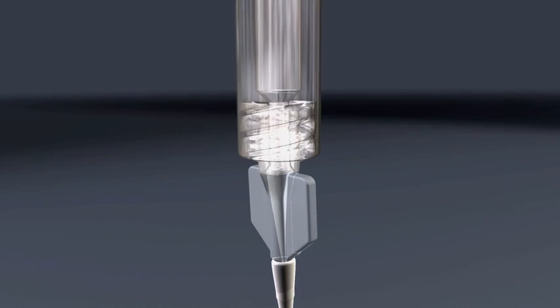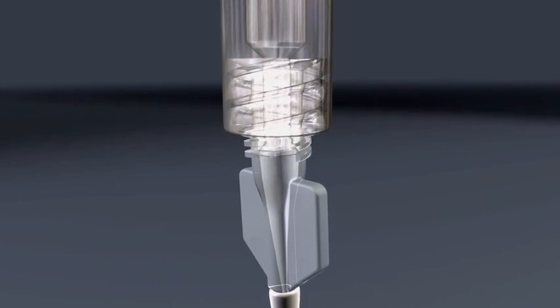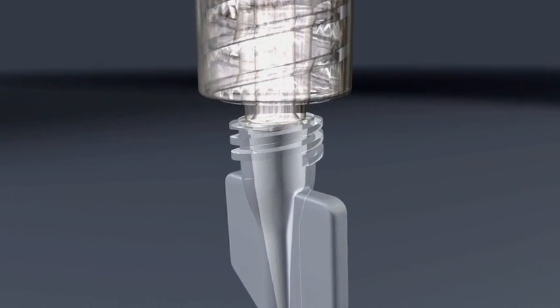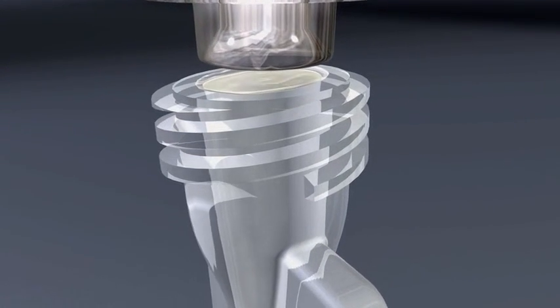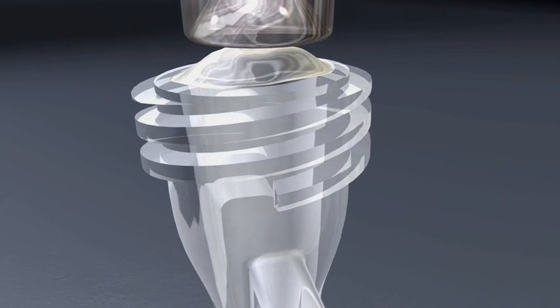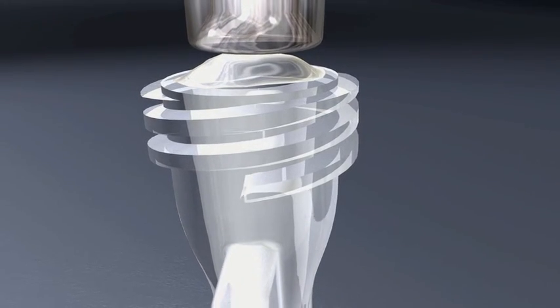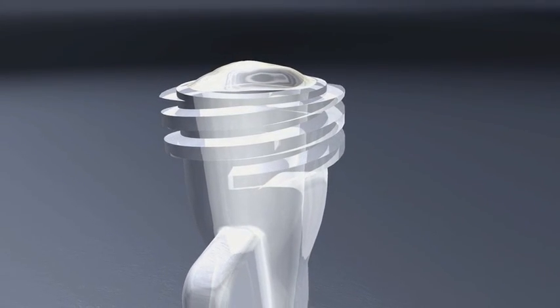As soon as the DMSO has been injected into the catheter dead space, remove the DMSO syringe. Hold the catheter hub in a vertical position and overfill and wash the luer hub with the balance of the DMSO, creating a meniscus of DMSO in the catheter hub.